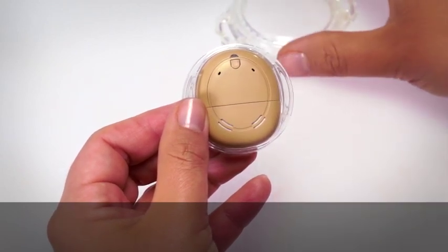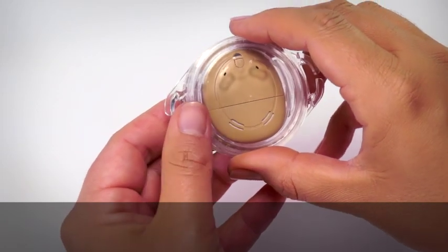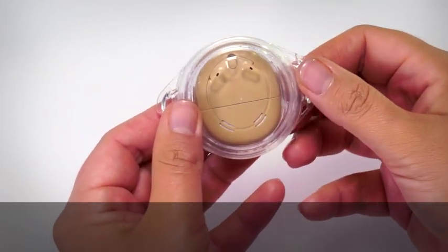Put the Aqua Plus top cover on the base unit by lining up the button shape on the top cover with the button on your Kanso.